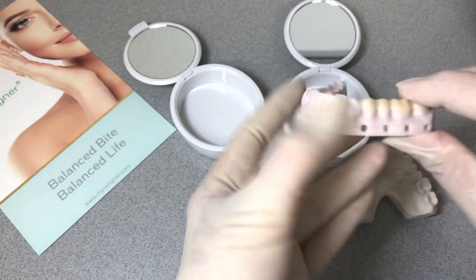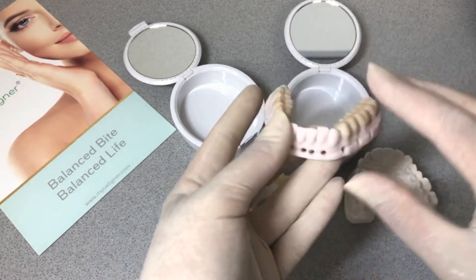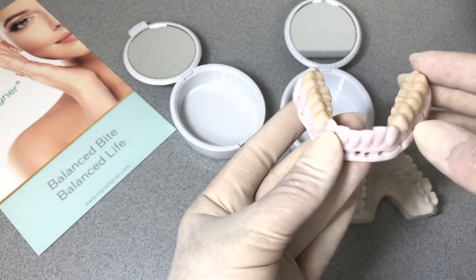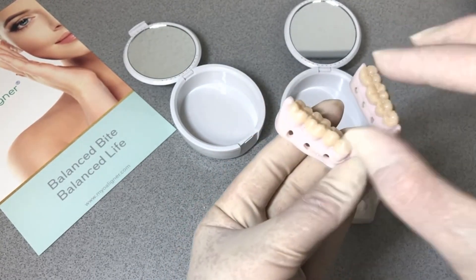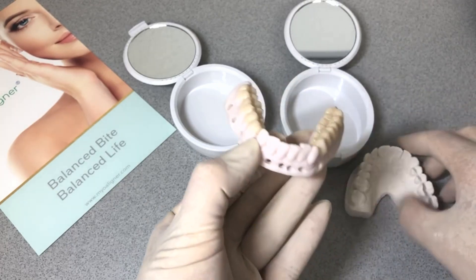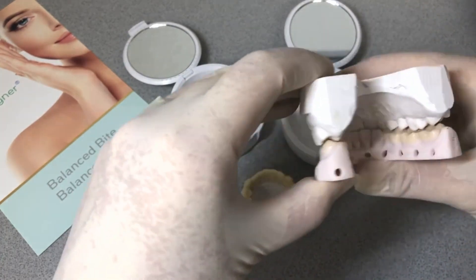We don't usually recommend patients wear these for more than three months. Three months is usually enough for bioremodeling, and I look at this as a diagnostic phase of treatment — get them in an orthotic, see if they get some relief, and then start some structural changes by arch expansion, uprighting the teeth through ortho, and other approaches such as correcting tongue posture with functional therapy and bite alignment.